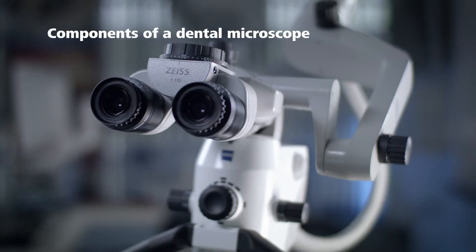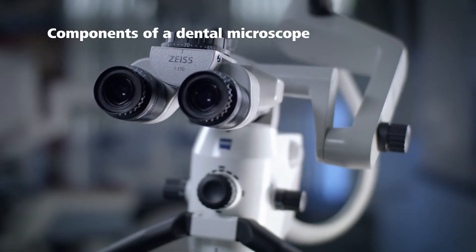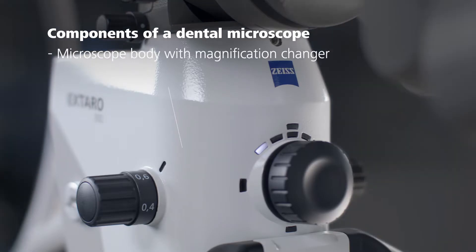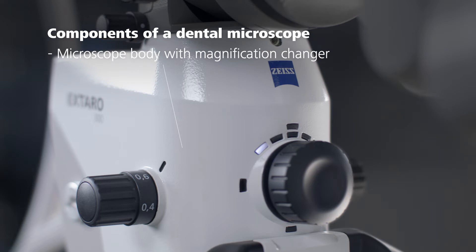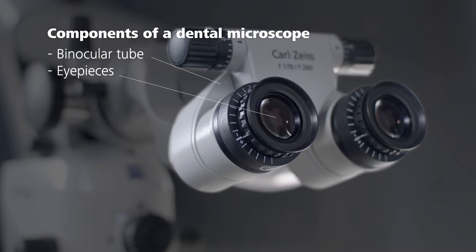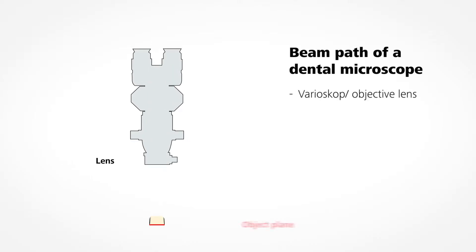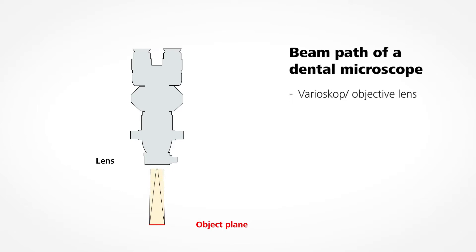A dental microscope consists of the following main components: a varioscope or objective lens, a microscope body with magnification changer, a binocular tube head, and two eyepieces. The varioscope or objective lens projects the image of the object into the microscope.